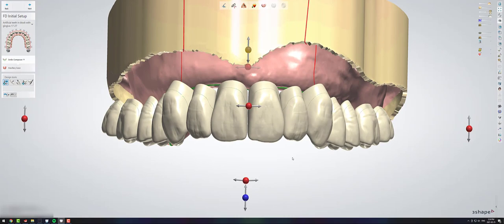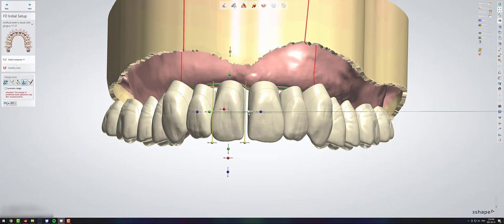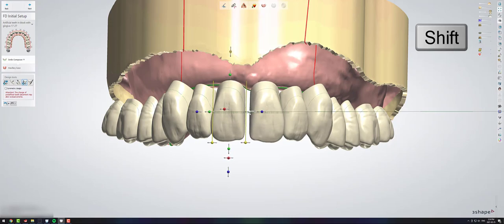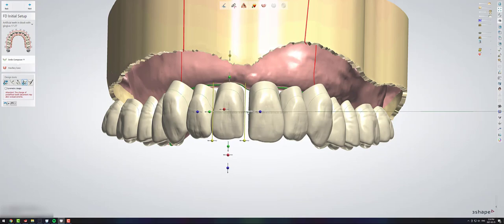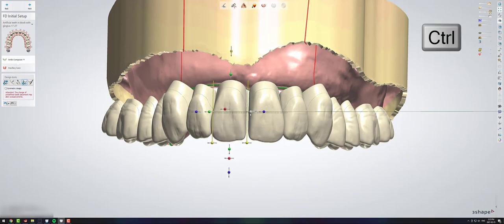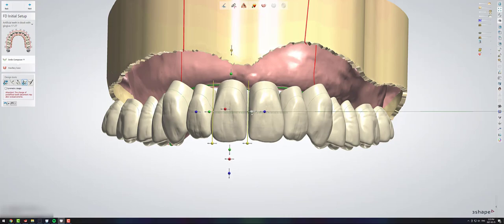In the denture design, you can use some keyboard shortcuts also. So obviously this little green button changes the size of your teeth. If you hold shift, it will change the size of the tooth symmetrically. If you hold control, it will equilaterally change the size of your teeth. So therefore, if you hold control and shift, it will change your two sides symmetrically.